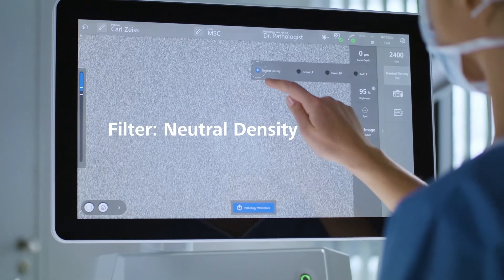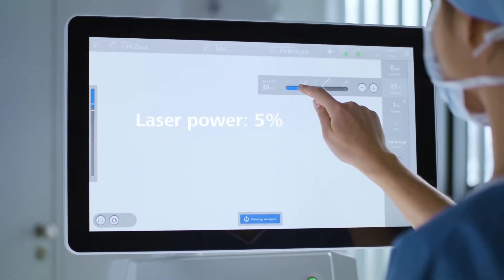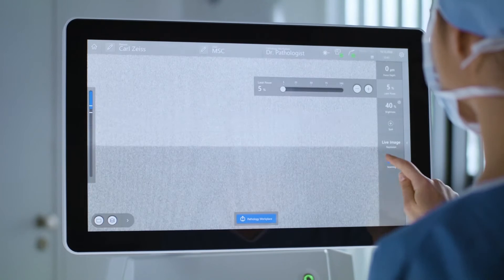Set filter to neutral density. Set laser power to 5%. Change resolution to recording.